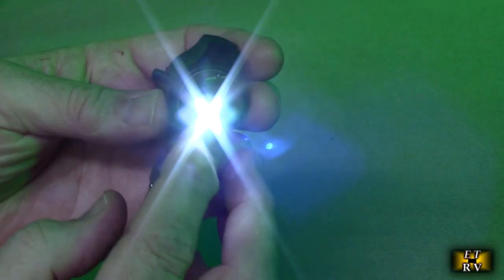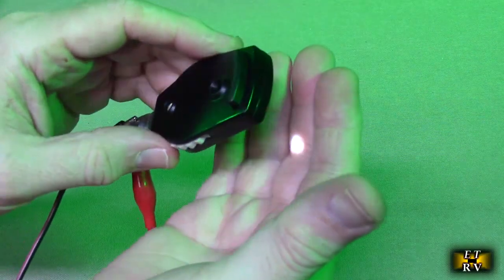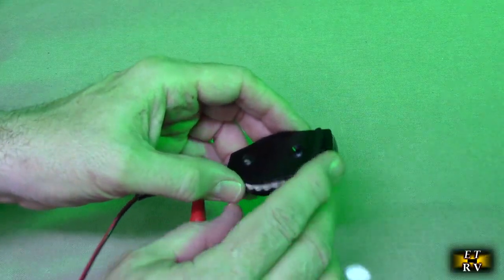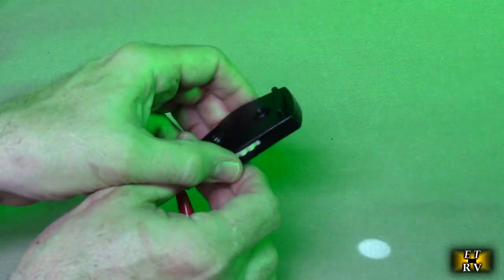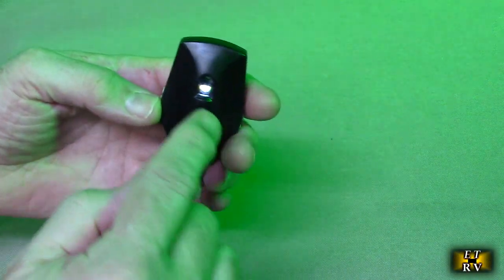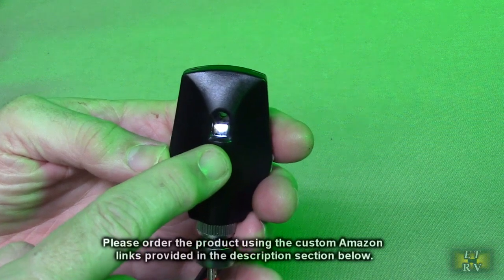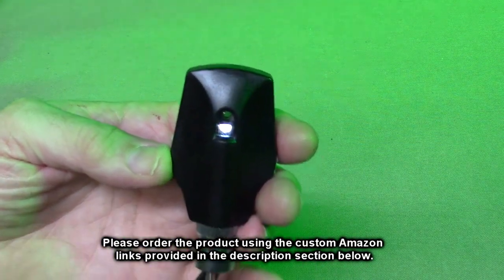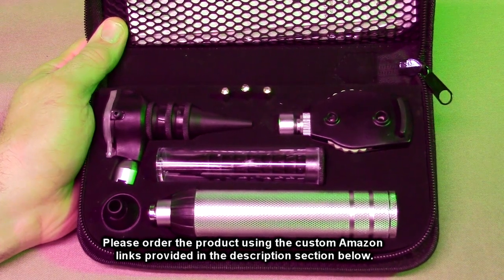The LED is super bright and doesn't generate any heat, which is what you want. Now with the ophthalmoscope powered on, you can see the little LED and the precision aperture control. That's going to allow you to focus in on any retina issues. The light is sent right to the center — very balanced and even, not super bright since this is going into the eye, but a very balanced white LED light.